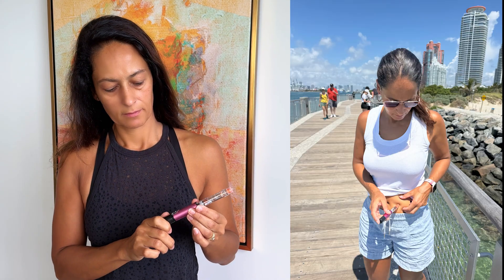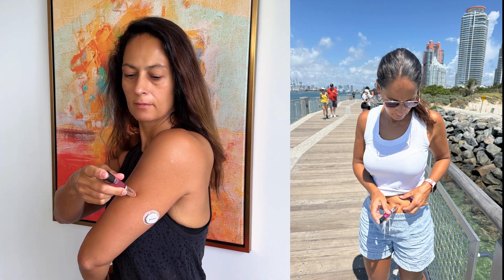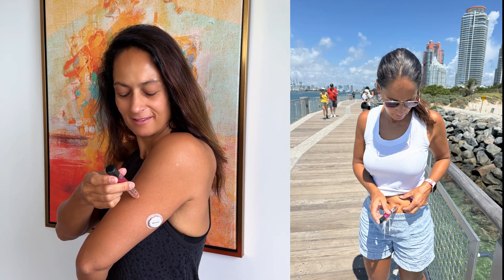Site rotation is something that I focus a lot on. Insulin injection site rotation simply means that you don't inject into the same spot over and over. There are some different techniques on how to do this, but let me show you mine. For my rapid-acting insulin — that's my mealtime insulin — I rotate between my arms and my abdomen. I'll start on my right arm in the morning, then switch to the right side of the abdomen, the left side of the abdomen, and then the left arm, and then rotate that around.